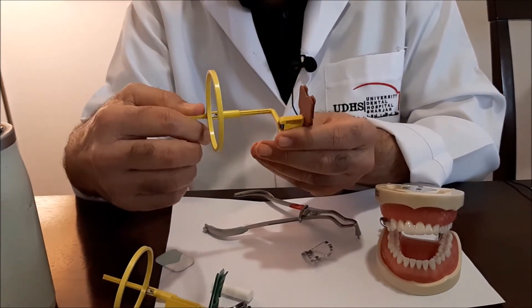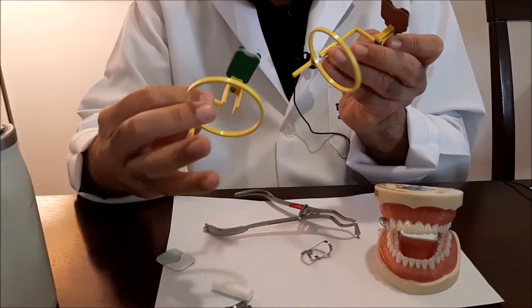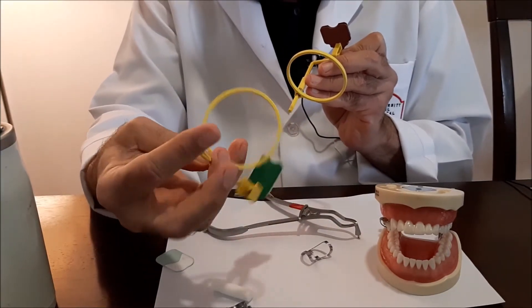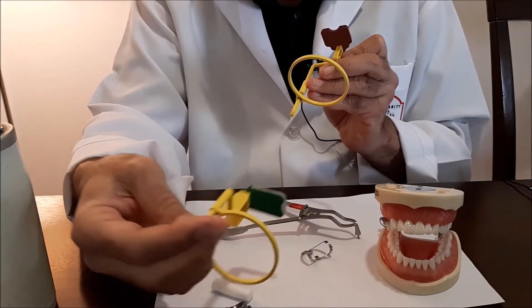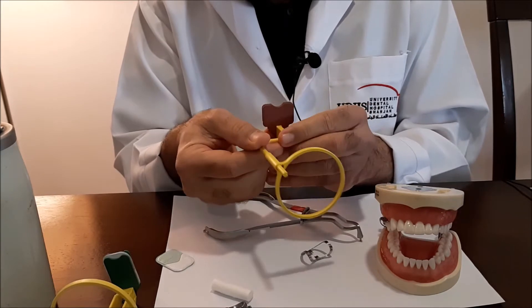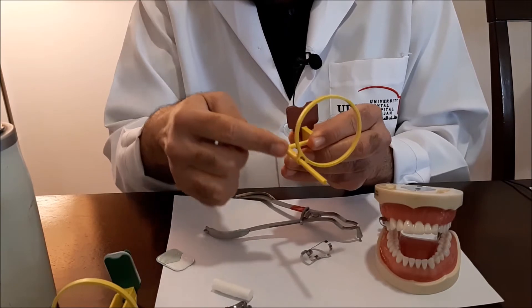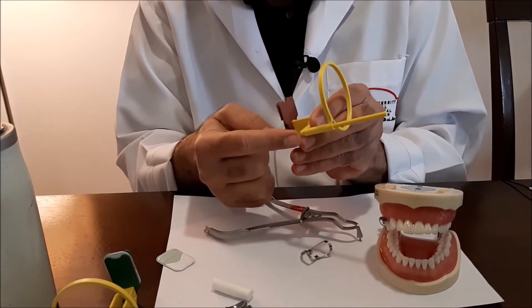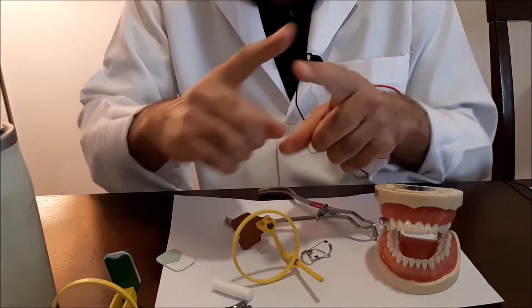The difference with these sensor holders compared to the anterior ones is that for anterior teeth, if using the upper you point it upwards; for lower you simply flip it downwards. This posterior one is a bit different — it has a transverse angle in the connecting arm between the ring aligner and the holder.